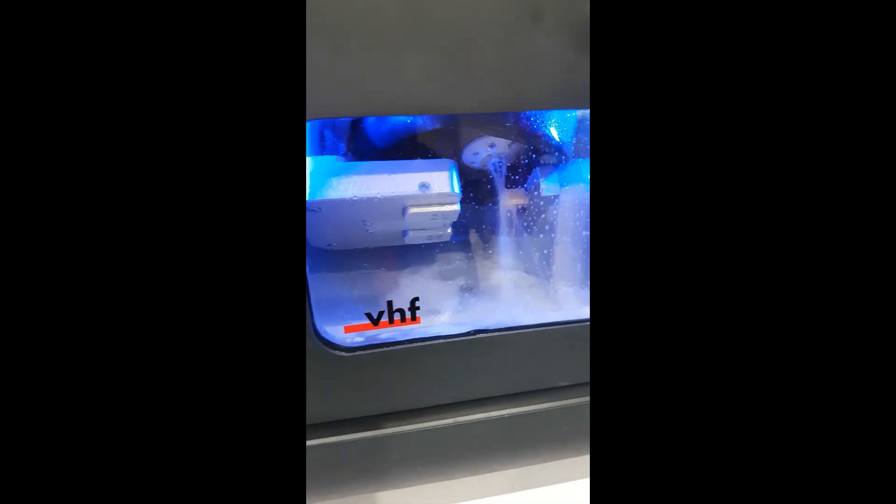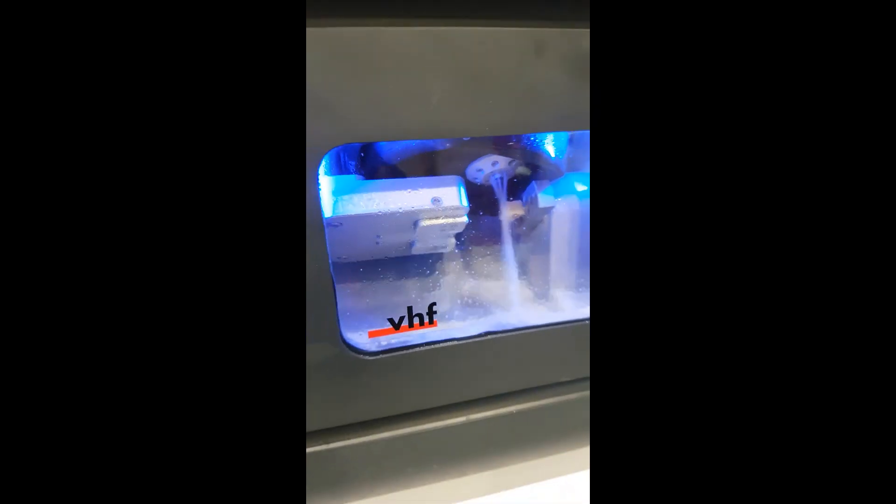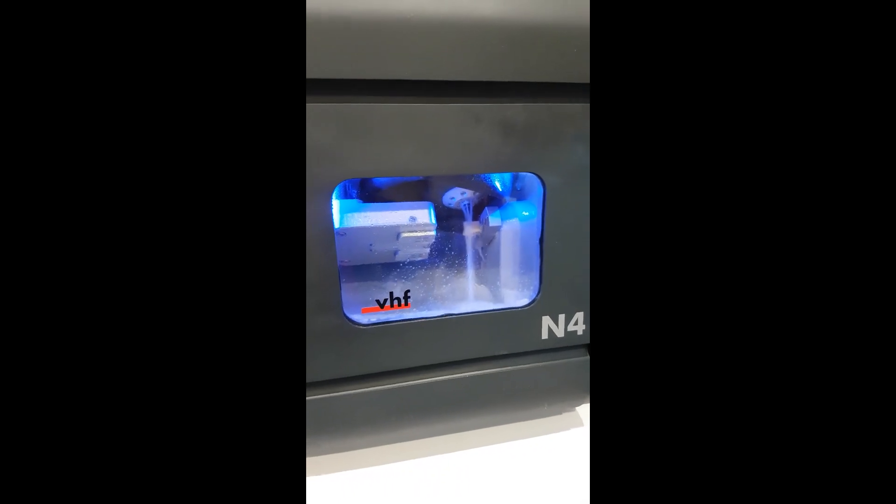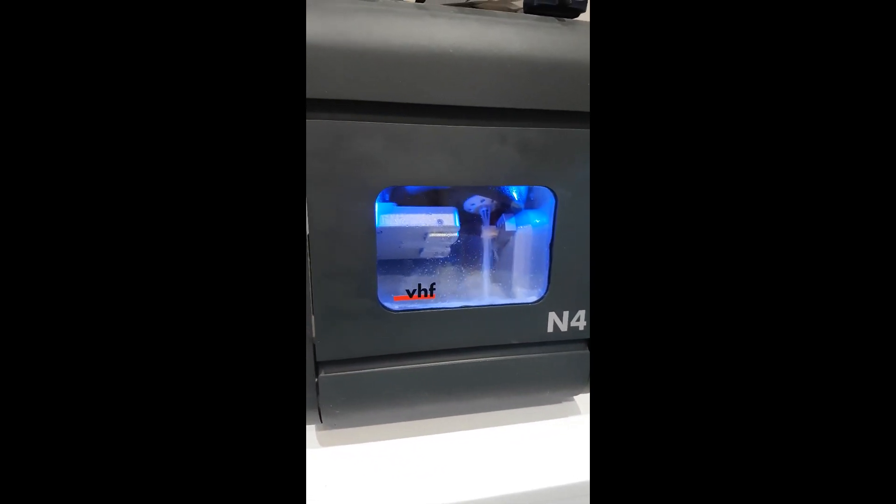As you can see, the N4 has started working. It's using quite a large diamond-coated burr here—this is 2.4 millimeter. Certainly it's a little bit noisy, to say the least. The N4 is really a lab-grade machine.